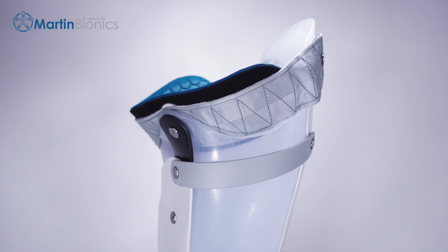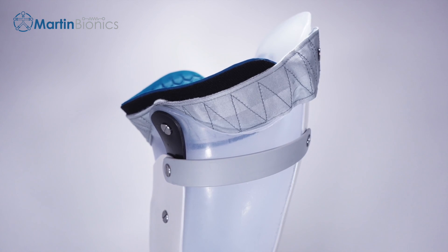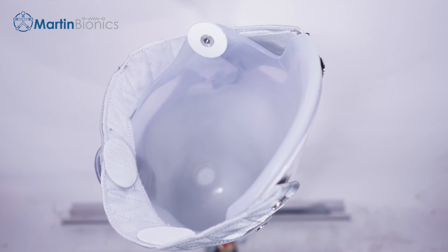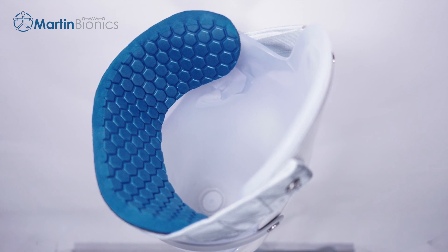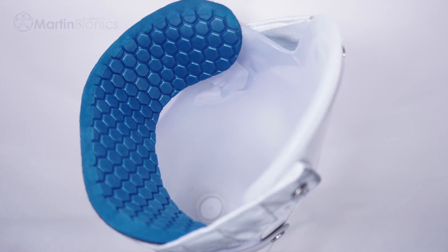The posterior side of the Swing Webbing is mounted at the proximal lateral aspect of the frame, typically as high as possible. Placing the three Velcro dots on the Swing Webbing in these locations will help ensure the brim pad is secure. The brim pad will span from the anterior swivel to the posterior Swing Webbing. Looking down into the socket with the integrated Swing Brim should largely resemble the socket's original trim lines and shape.